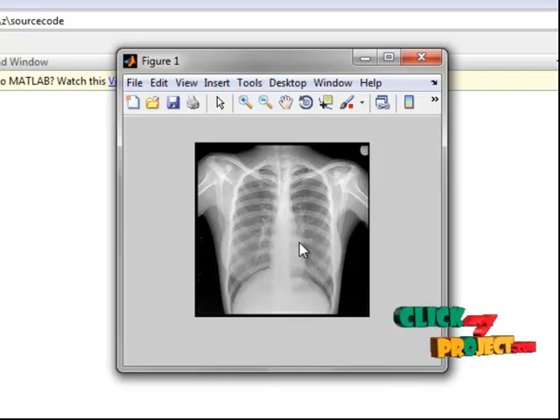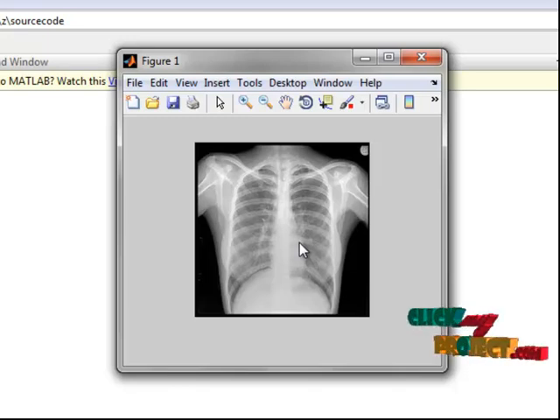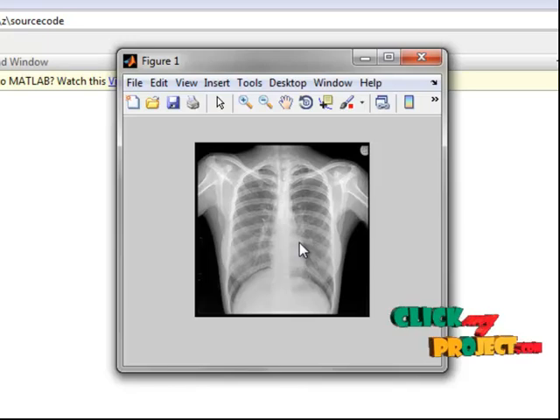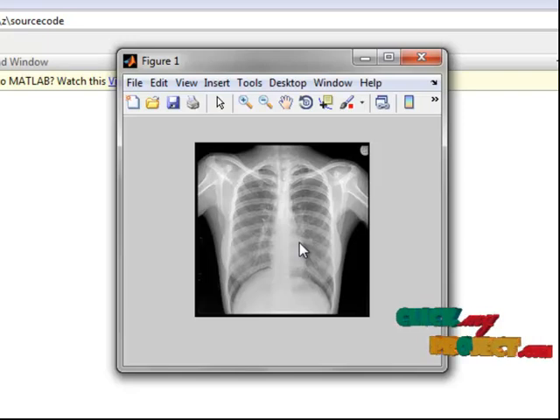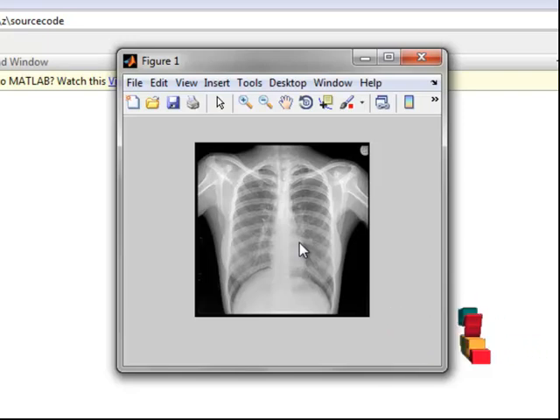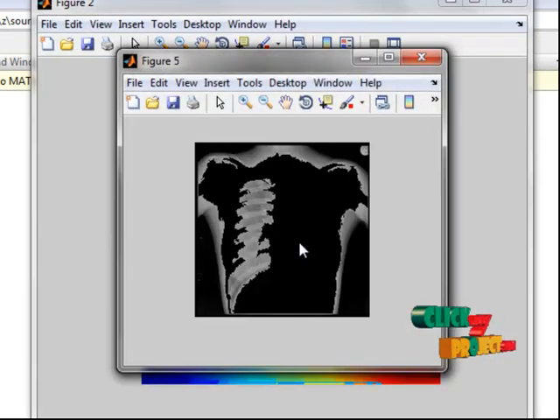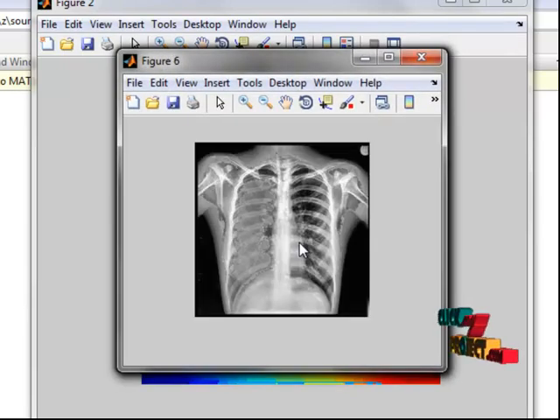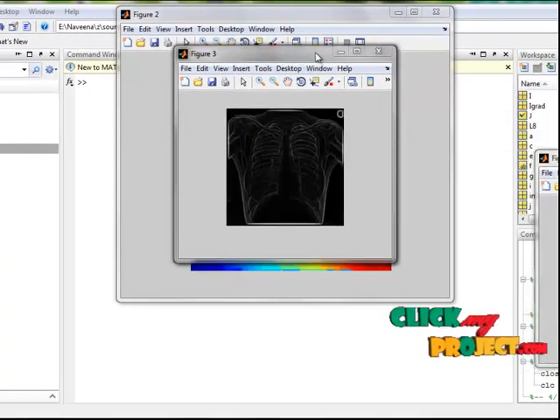Belonging the foreground and background separation, only the foreground buffer pixels are extracted and the adaptive histogram equalization is applied. Then the adaptive histogram equalization foreground pixels are combined with the remaining background buffer to form the enhanced image.